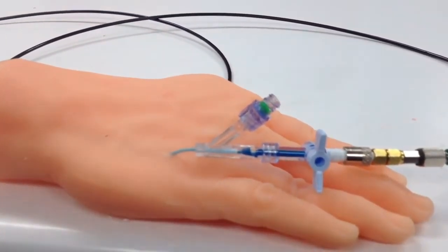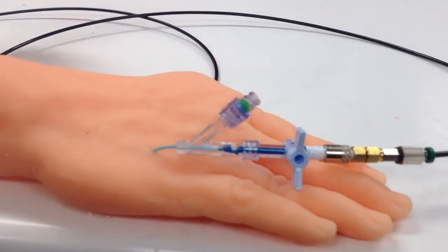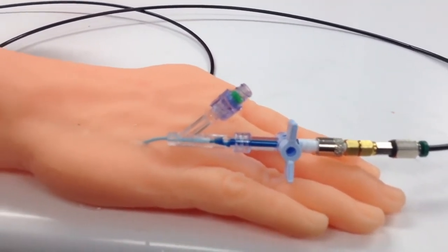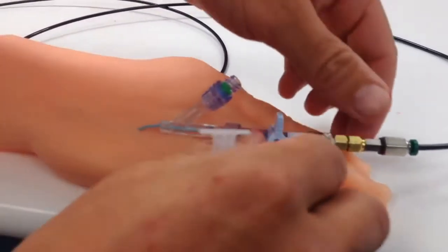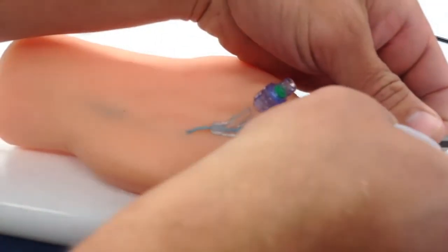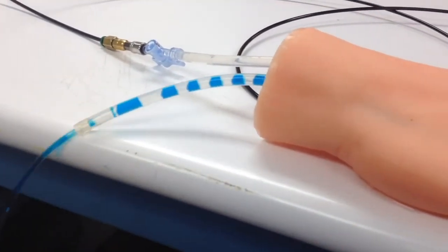The video you see is a bench test of our latest prototype. The device is hooked up to a simulation circulatory system. The clear fluid you see is representing blood and the blue fluid representing IV fluid being infused into the vein.